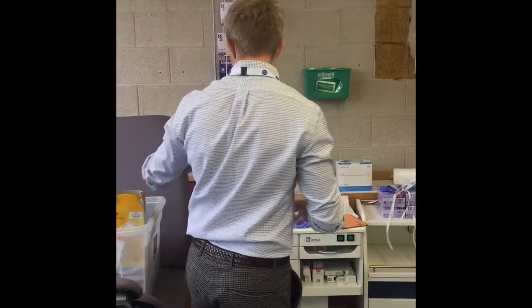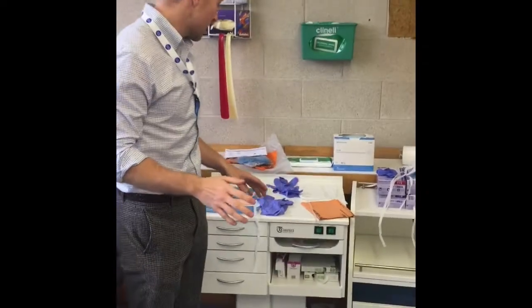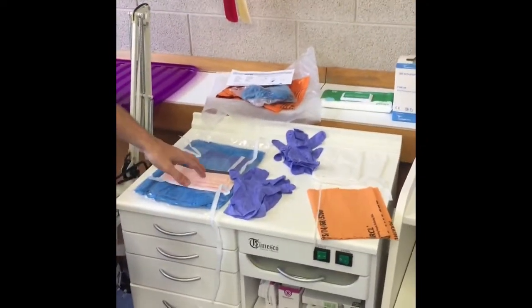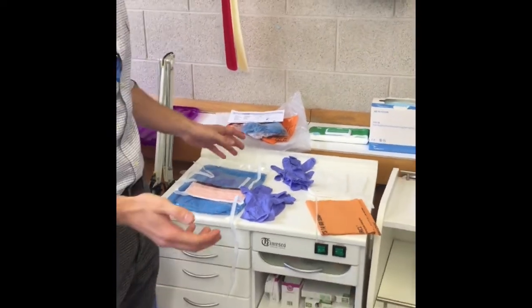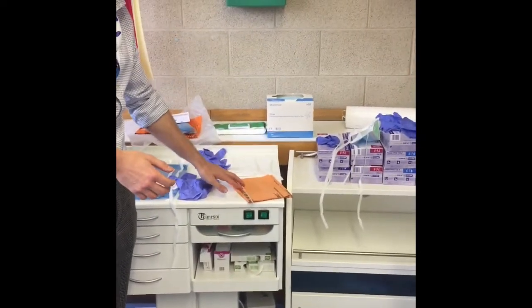We've got our PPE bags which contain everything that you need. So there's two pairs of gloves, an apron, a gown and a mask with a visor. The visor is important, so get a mask with a visor if you're going to examine someone that you're worried about. And then your second orange bag and a wire tie from the top of it.